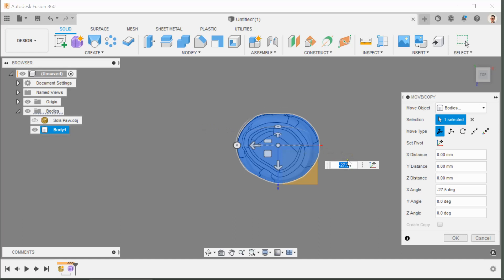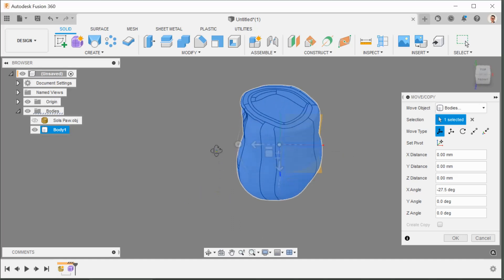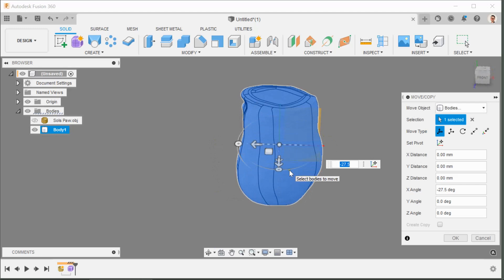And I can see here it's slightly off center. So I need to twist this round. I need to turn the stump so that it turns counterclockwise probably two or three degrees and that will be perfect. And I may need to change it later on again, but it will give me a very good starting position.